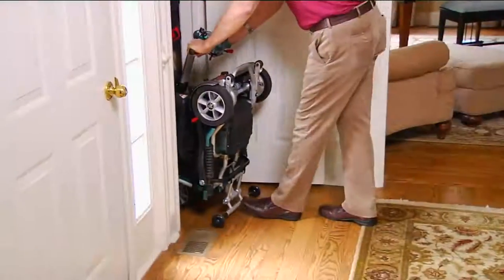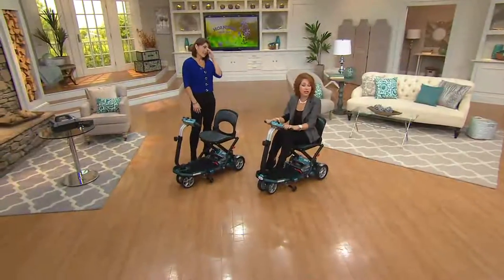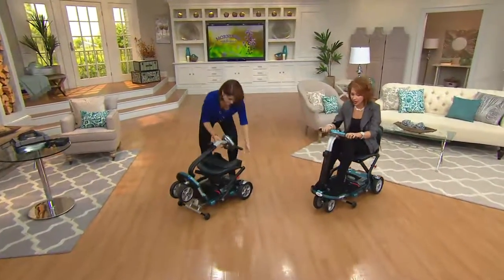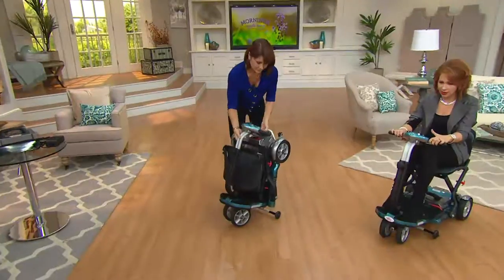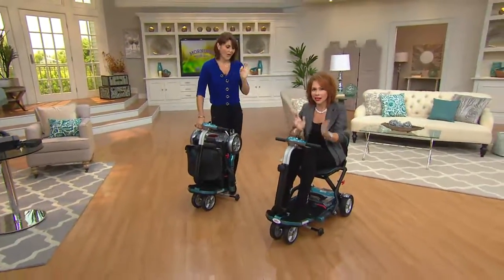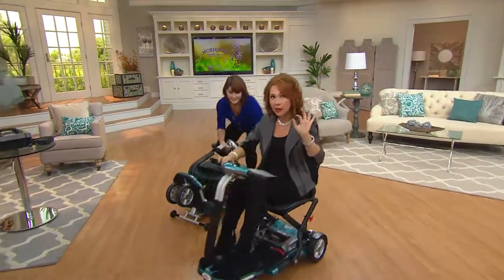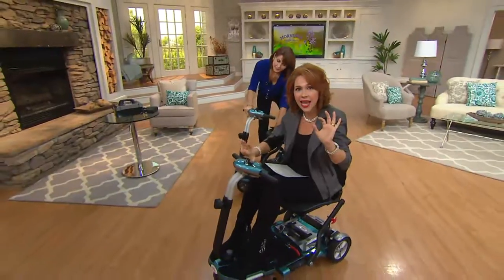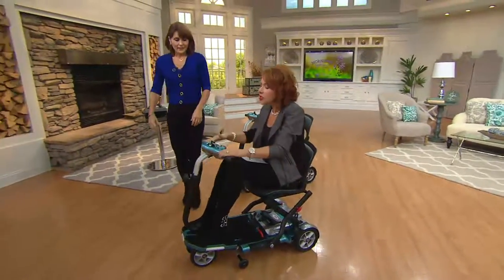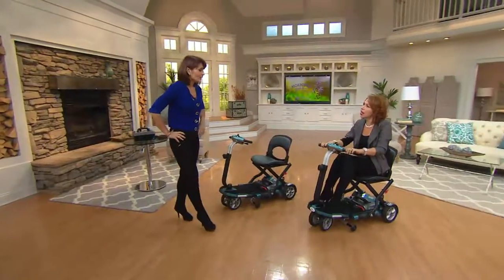It's so important to continue to build those memories with your family. Maybe it's an older aunt or uncle, or maybe it's somebody who had a new surgery — this could come in very handy for someone who's had knee surgery or foot surgery. One of my favorite things is that this also starts and stops on a dime — not just turns on a dime. When I press it, it starts gently but very quickly, and when I release it, I stop within a fraction of a second.